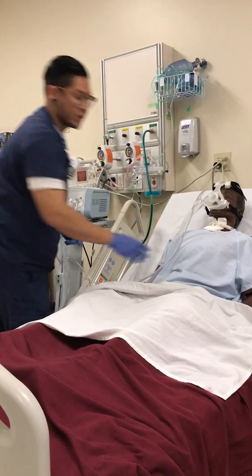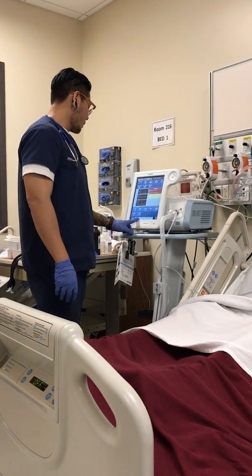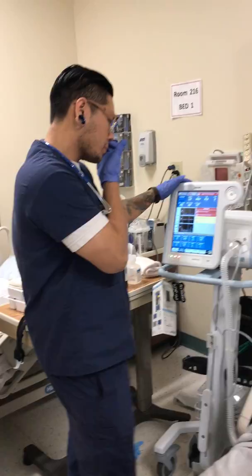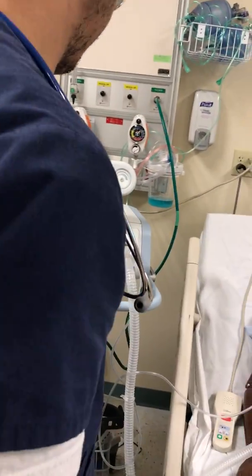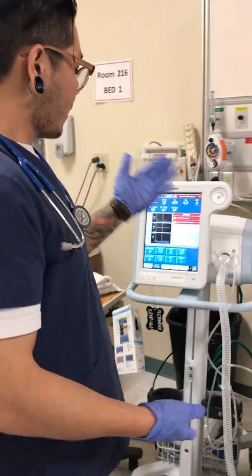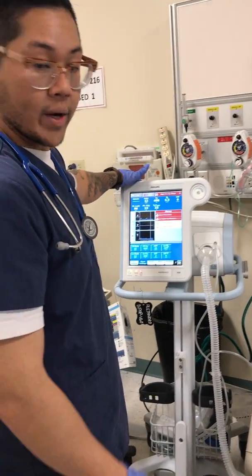Now let's work on the patient alarm. We're going to have to work on the alarm settings. So at the high rate, my rate's at 14. I usually want to go about 10 higher, so I want to go to 25. And for the low rate, I think 12 is good. The regular respiratory rate is 12 to 20, so you want to go in between those so it can alarm correctly.